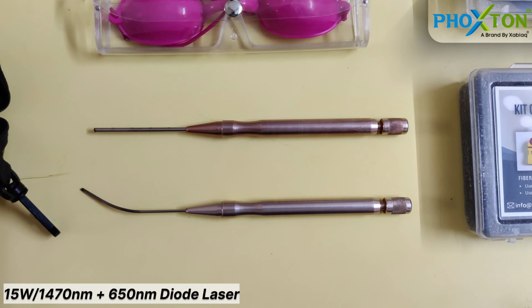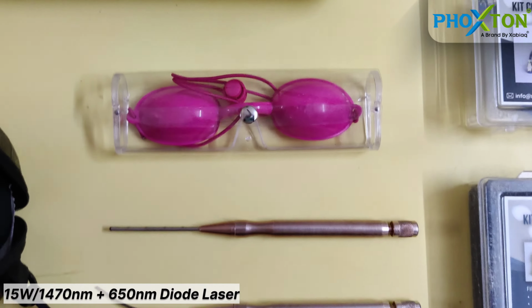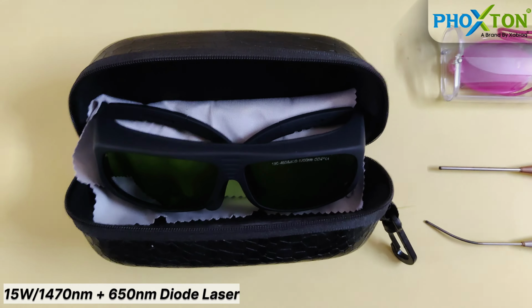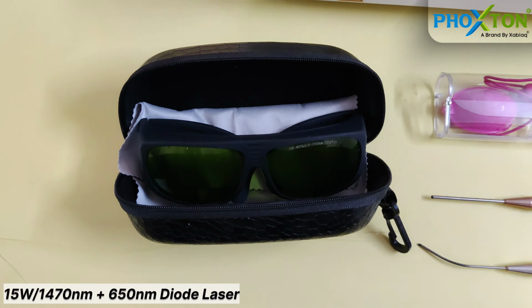These are our main handpieces. One is a straight handpiece and the second is a curved handpiece. This is patient eyewear. These are the doctor goggles. There are two goggles provided with the laser.